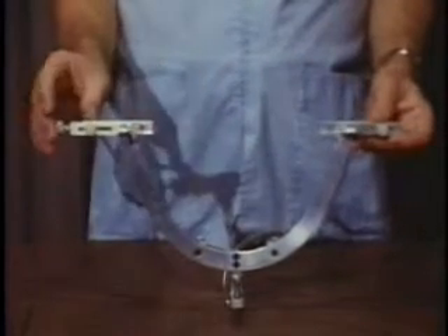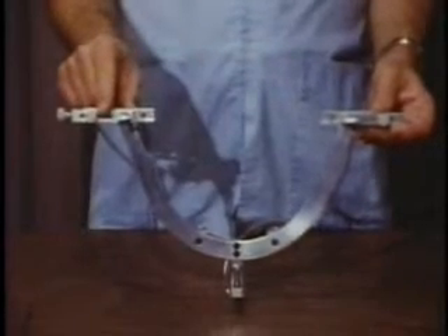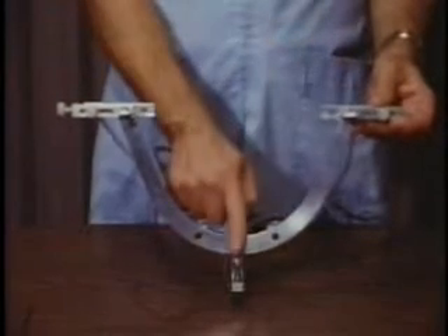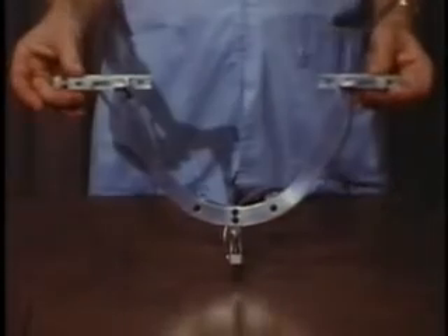Two of the drills are horizontally aligned on a common axis with their tips located precisely at a standardized distance of 220 millimeters apart for recording the movement from the hinge axis of the mandible. These two drills, in combination with the anterior drill, form a recording tripod.